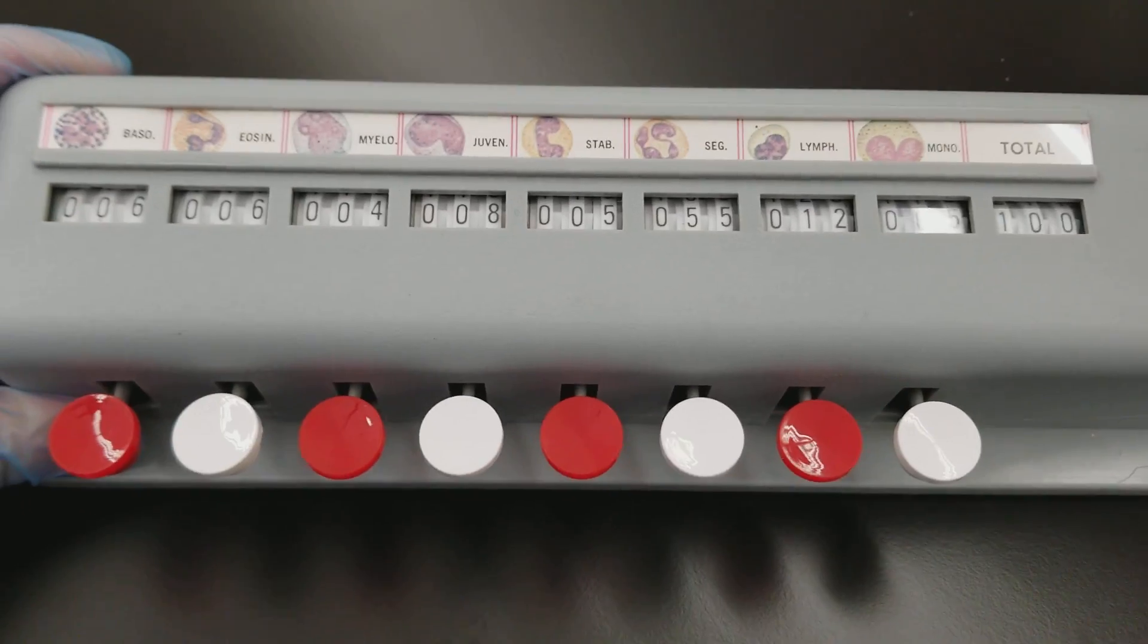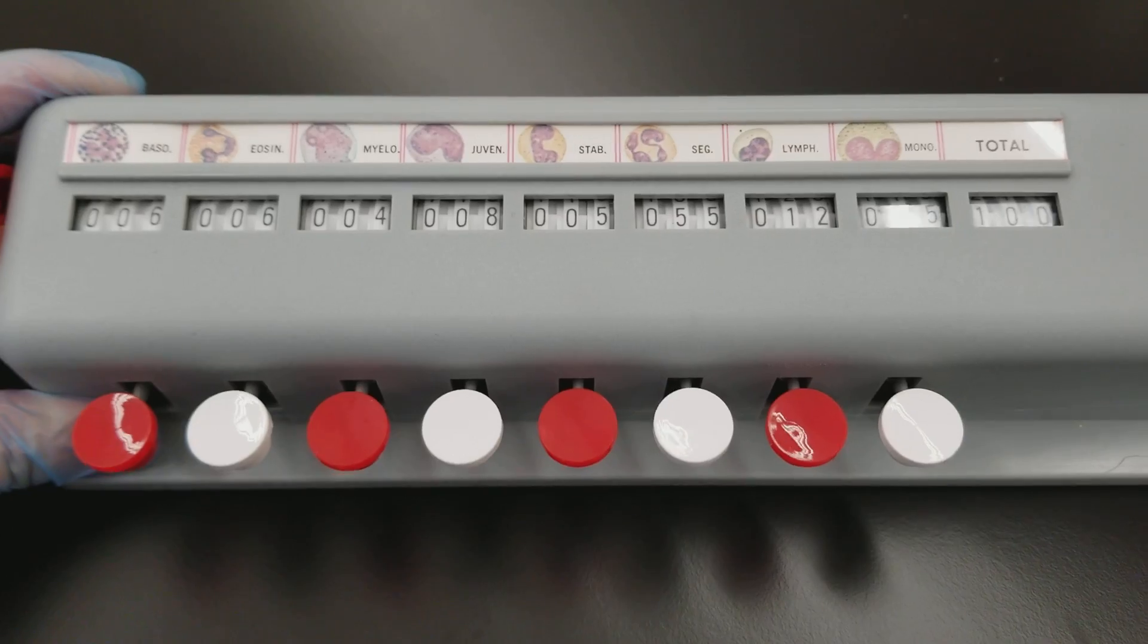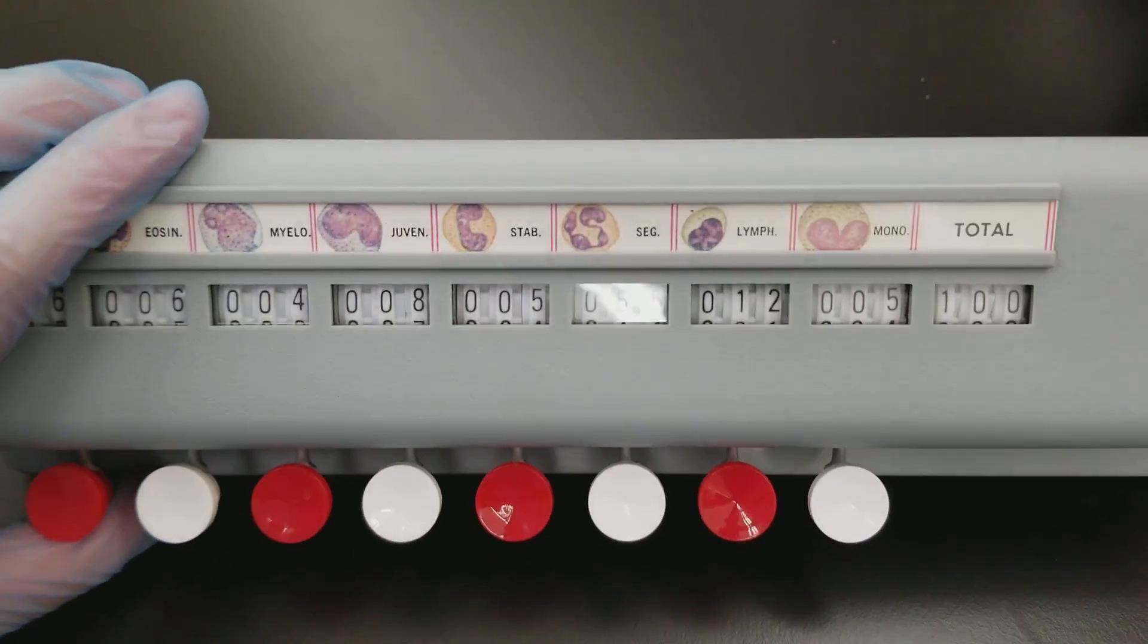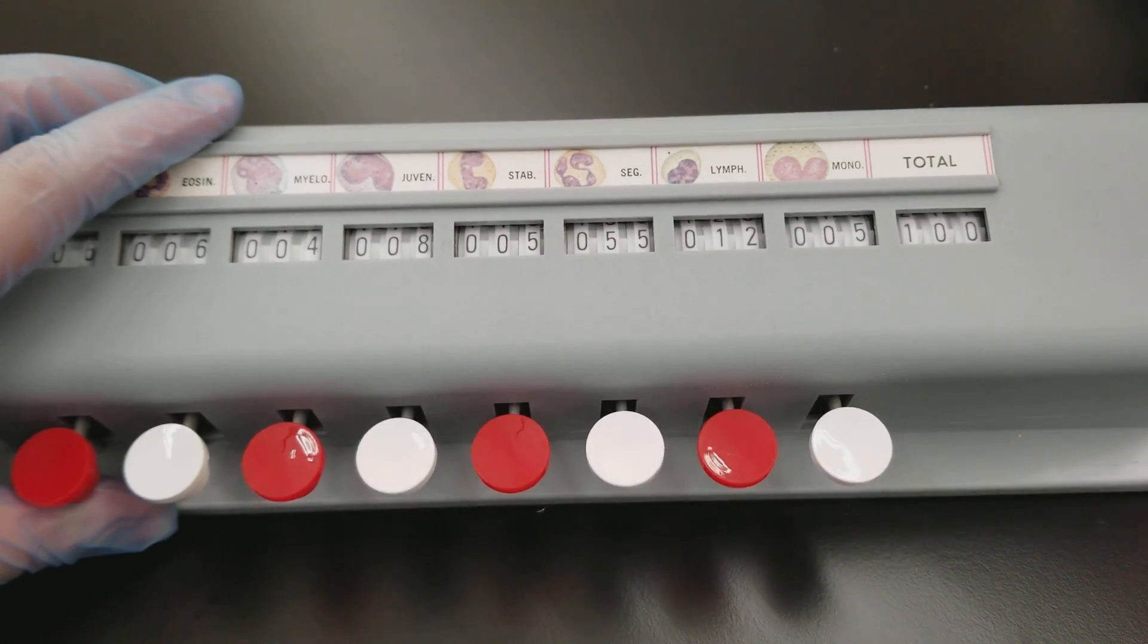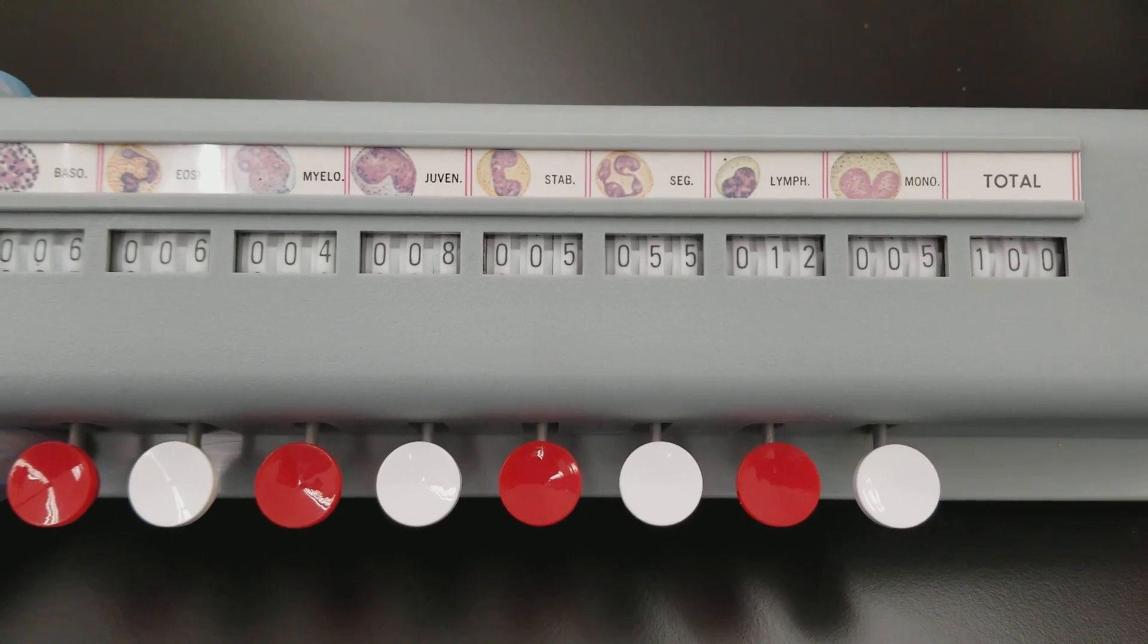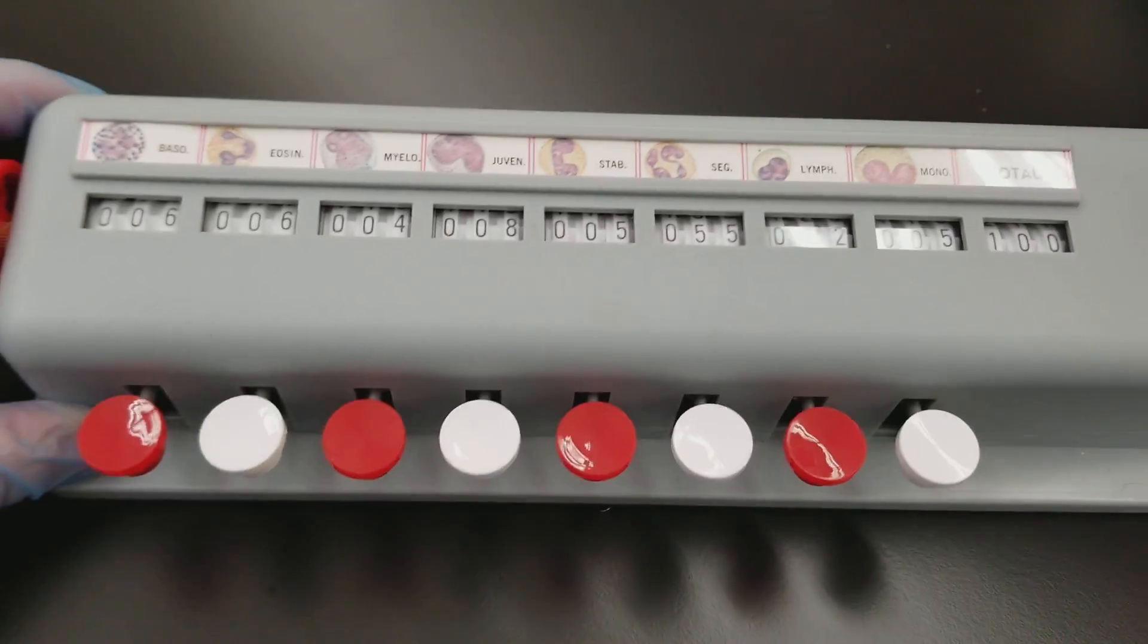Modern day systems, you actually are doing the counts, the differentials on computer keyboards. You don't even really use these anymore. It all depends on the LIS system that your laboratory uses. But these are fun because they have the pictures. And it's great for students to learn on.